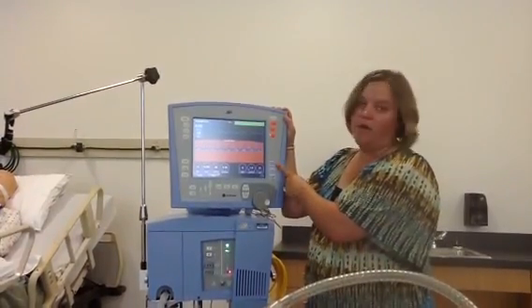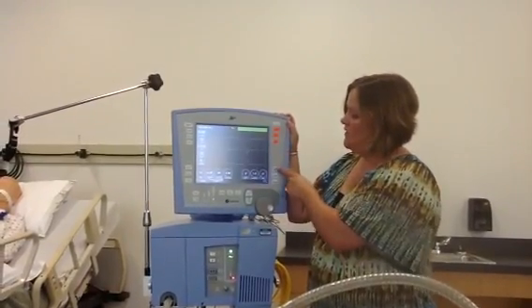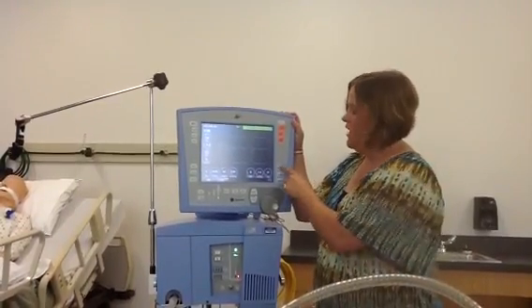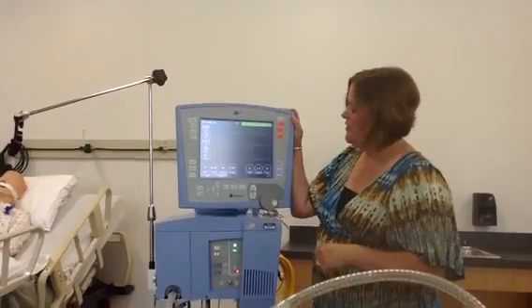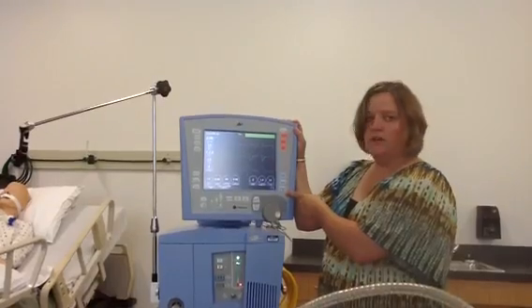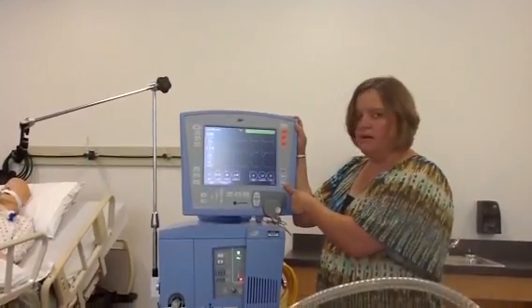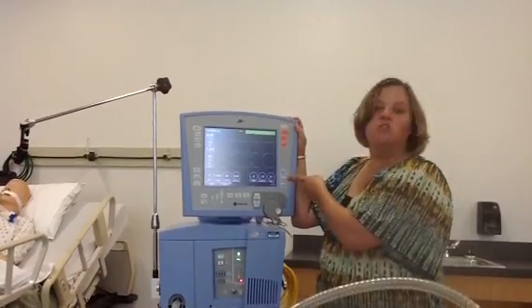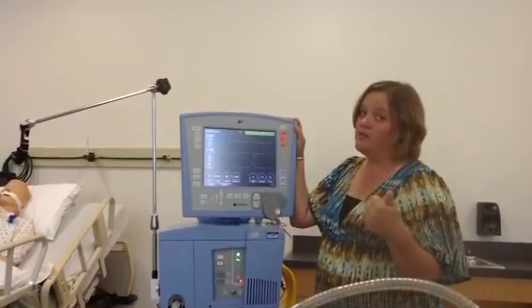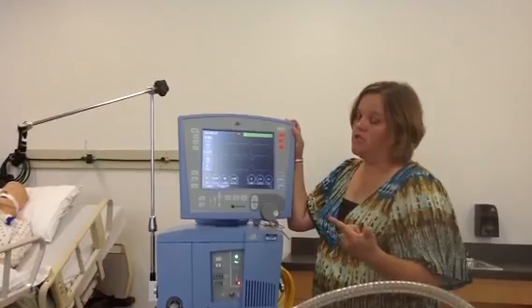If I wanted to give my patient a manual breath, I could use this button here to give a manual breath, as long as they're not already taking a breath or it is time for another breath — you can give it as many times as you want. These last two buttons: if you just wanted to increase your oxygen for two minutes, hit this button. If you hit the suction button for suctioning purposes, it not only silences your high-pressure alarm but also increases the oxygen for two minutes.